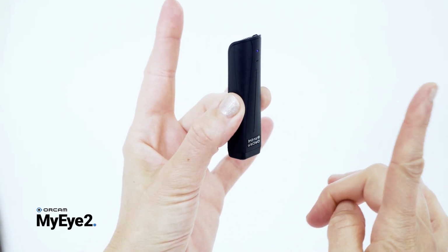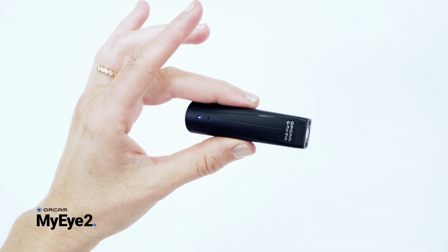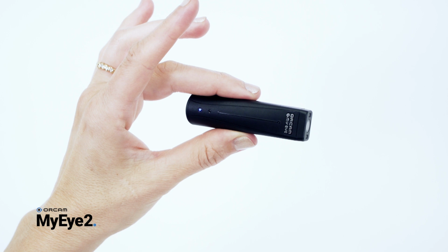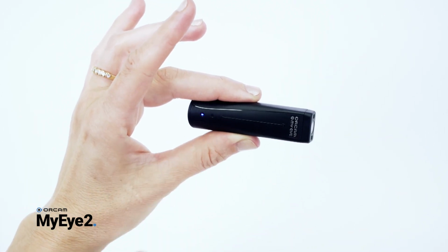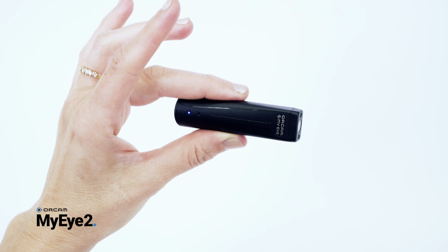Release the power button when your finger reaches the bottom of the touch bar, then you will hear "Main menu, reading language menu. Touch to select or swipe for other settings." To go forward in the menu, swipe forward. To go back, swipe backwards. Press the touch bar to choose the desired menu option. The device will then announce the menu selection.